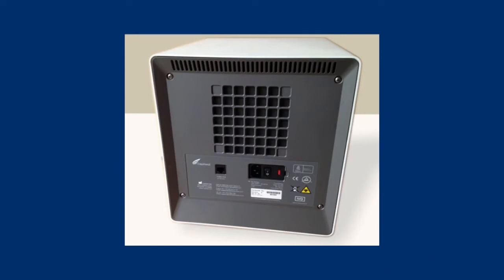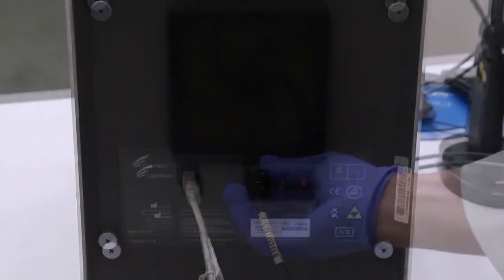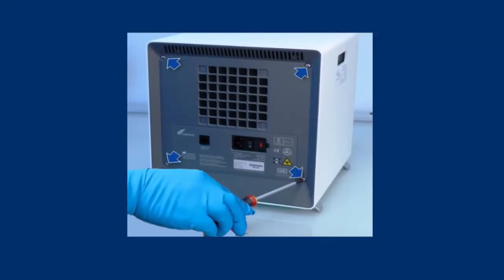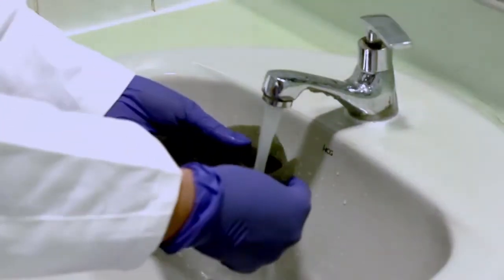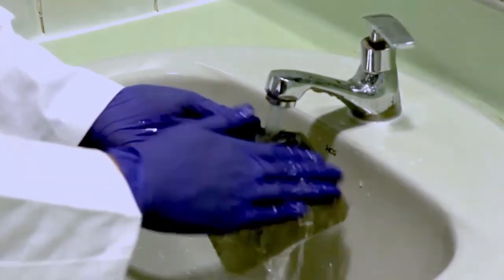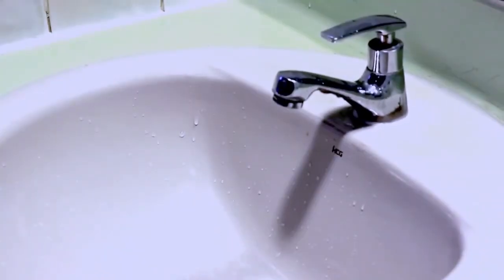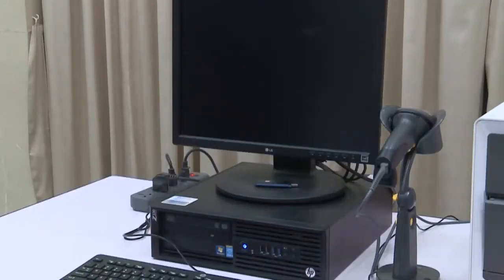If the fan filter is positioned behind the back panel, remove the power cable, network cable, and four screws on the back panel after turning off the GX system. Then tilt back the panel and remove the filter sponge. Wash the filter gently with soap and water. Let it dry between two paper towels. Put it back to its original position only when it is completely dry. Then switch on the GeneXpert system, and then switch on the GeneXpert computer.